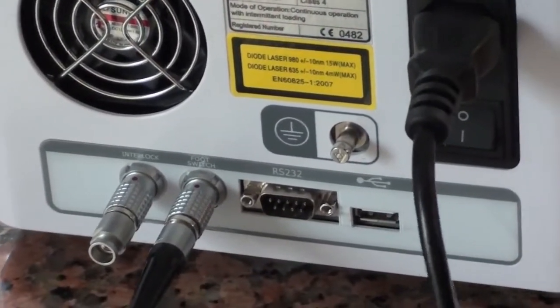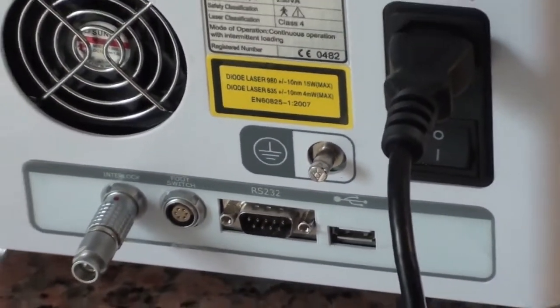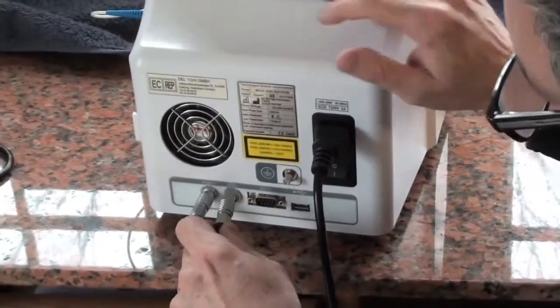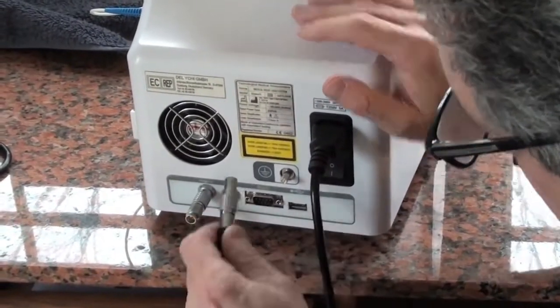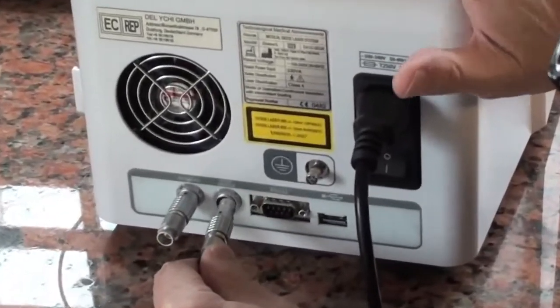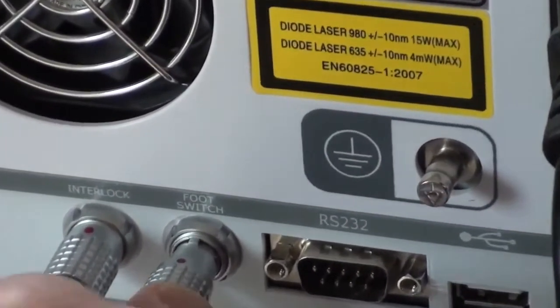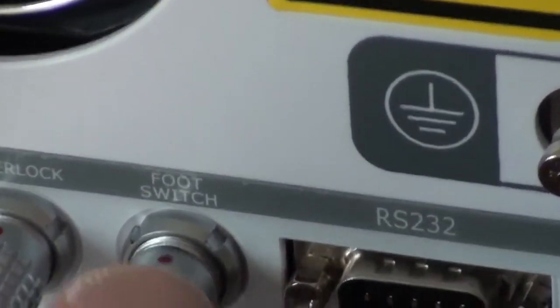The next feature is the foot pedal. Pulls right out. Everything, they're all the same adapters, 12 o'clock. If you put it in not at 12 o'clock it will not go in. Do not force it or you'll break it. Slips right in, and there, see how it's in very easily.